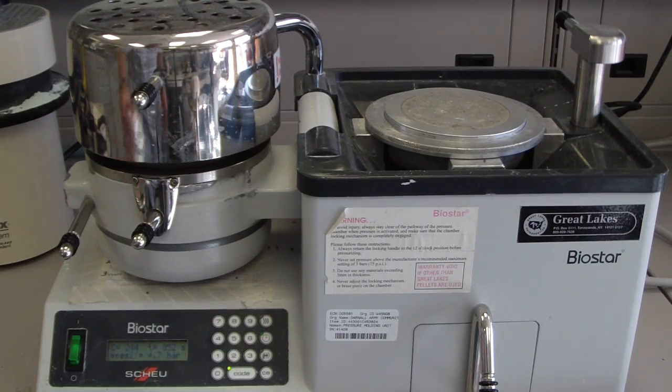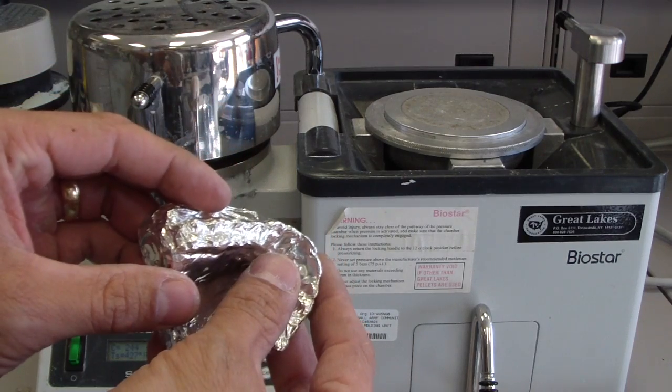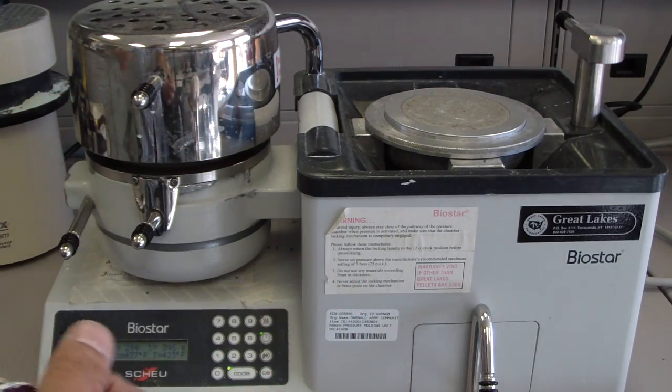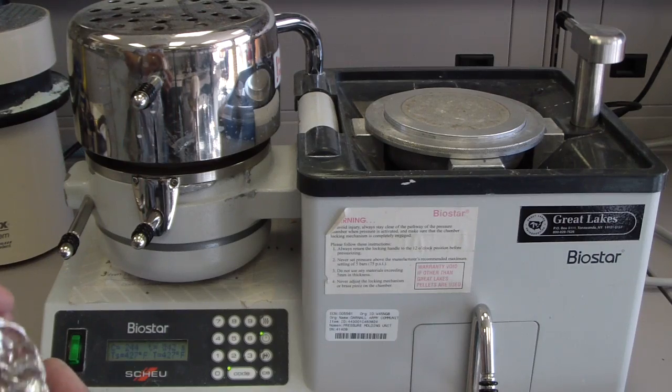Hey, welcome back to allthingsensory.com. I have a cast wrapped in tin foil for making a dual laminate bruxism splint.